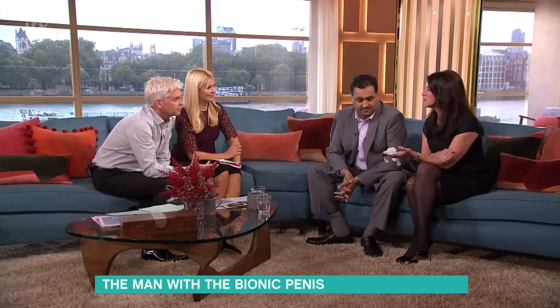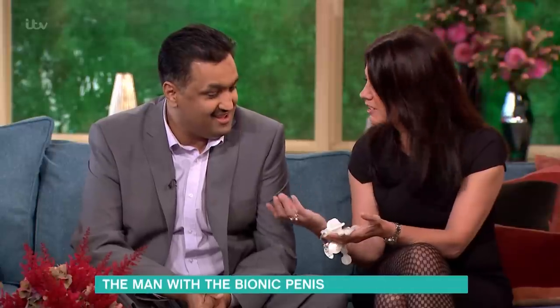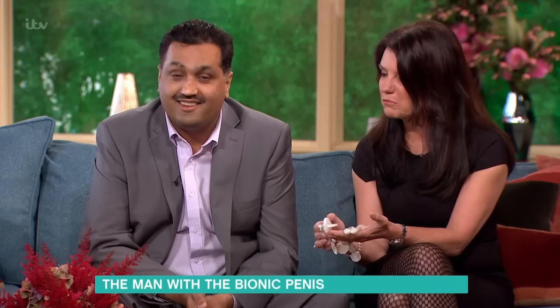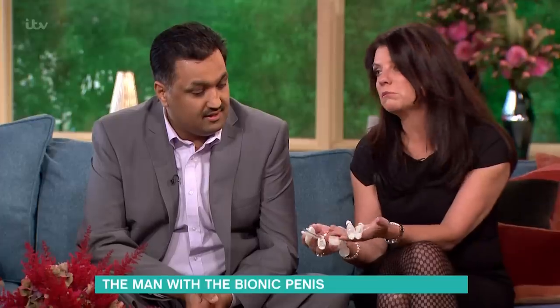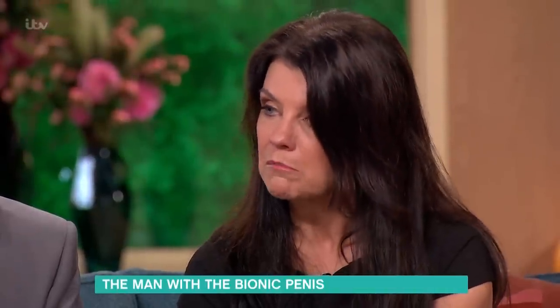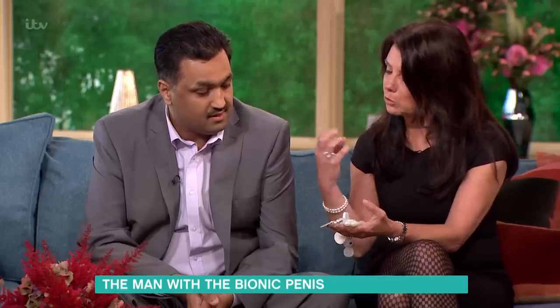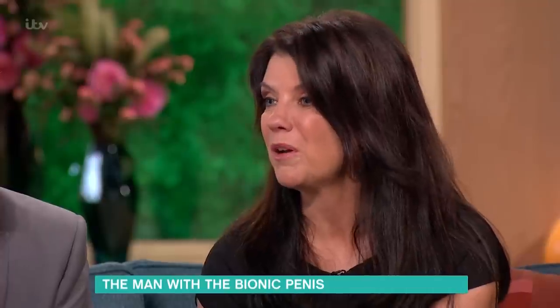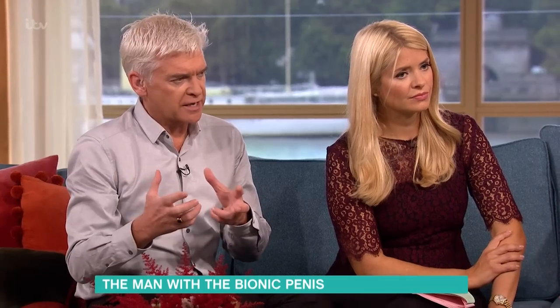It's quite heavy, isn't it. You're aware of it. These kinds of devices are used for example in men who've had their penis removed because of cancer, or for people who are impotent. Although you lost one testicle, you retained one, and that's why he can still produce sperm — fathering a child is quite a possibility.